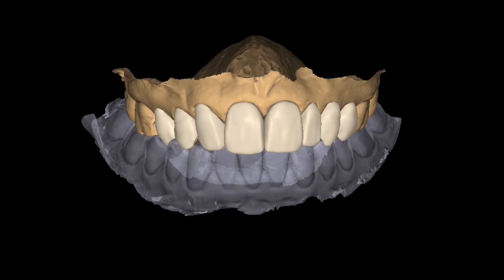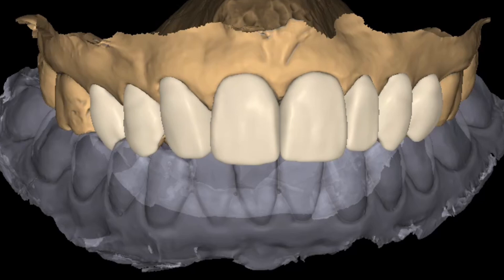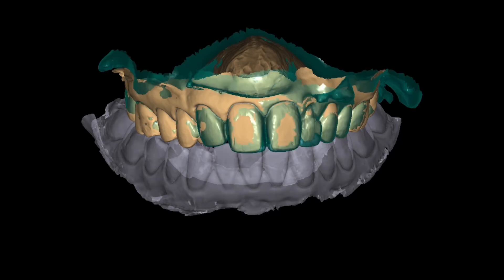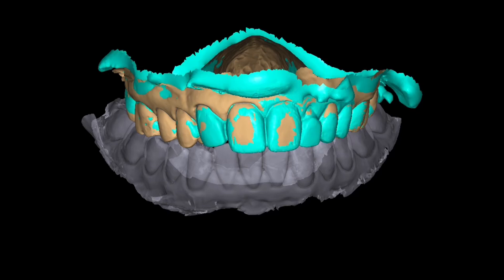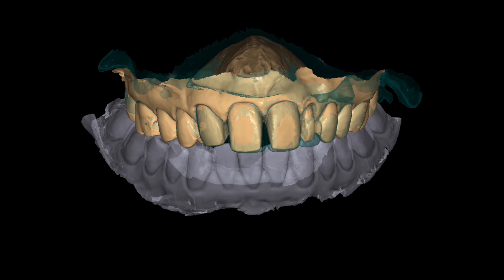And here we are throwing all this data into ExoCAD. In ExoCAD, we can see we were able to accomplish a little bit of what we wanted and give the illusion by moving line angles and uprighting the midline. On this cuspid in site number 7, we were able to kind of move that mesial line angle over given the reduction of the tooth. In the midline, if we turn on the pre-op, we can see the canted midline. We have no reduction on the facial of 8 and 9 — the preps are coincident with the pre-op — barely any reduction there, which is what I wanted, keeping all that enamel.